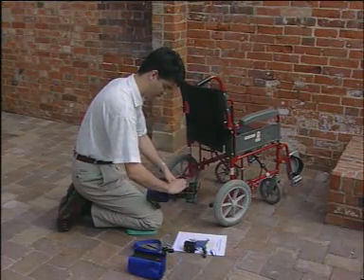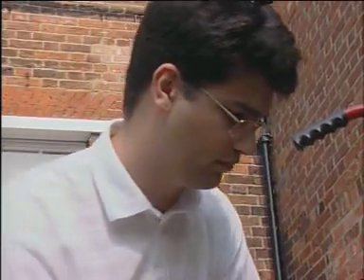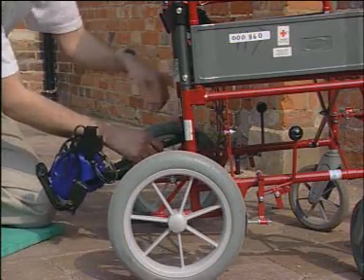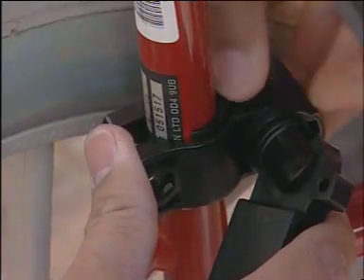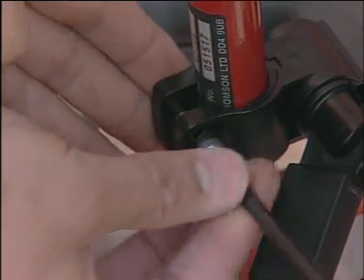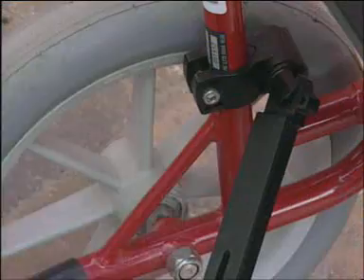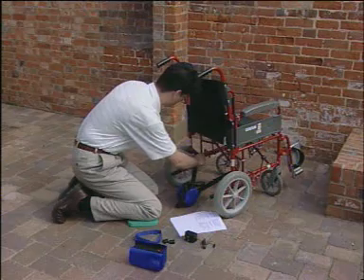So just how easy is the new Sinclair WDU to fit and maintain? The unit attaches to the vertical frame of the chair, which needs to be clear of any obstructions. The telescopic arms are fully extended ready for fitment. The clamps are snapped onto the frame — if the tube is of narrow diameter, insert the supplied black spacers to fill the space. Tighten the clamps, but not completely; slide them on each side of the frame until both are aligned around 25 cm — about 10 inches — from the ground. Then the clamps are tightened completely and secured.